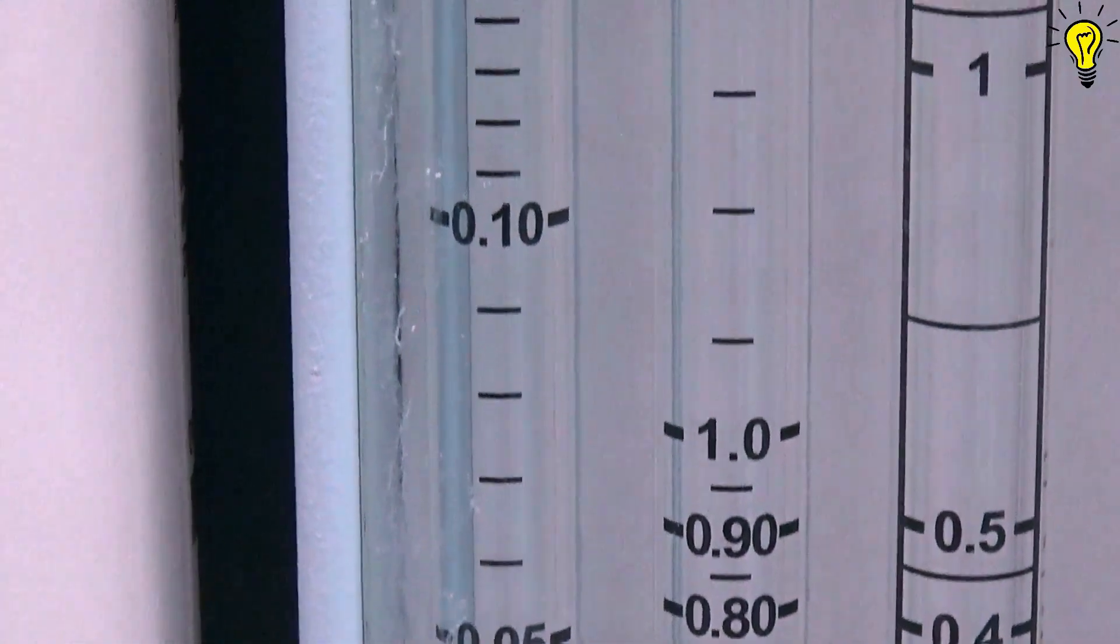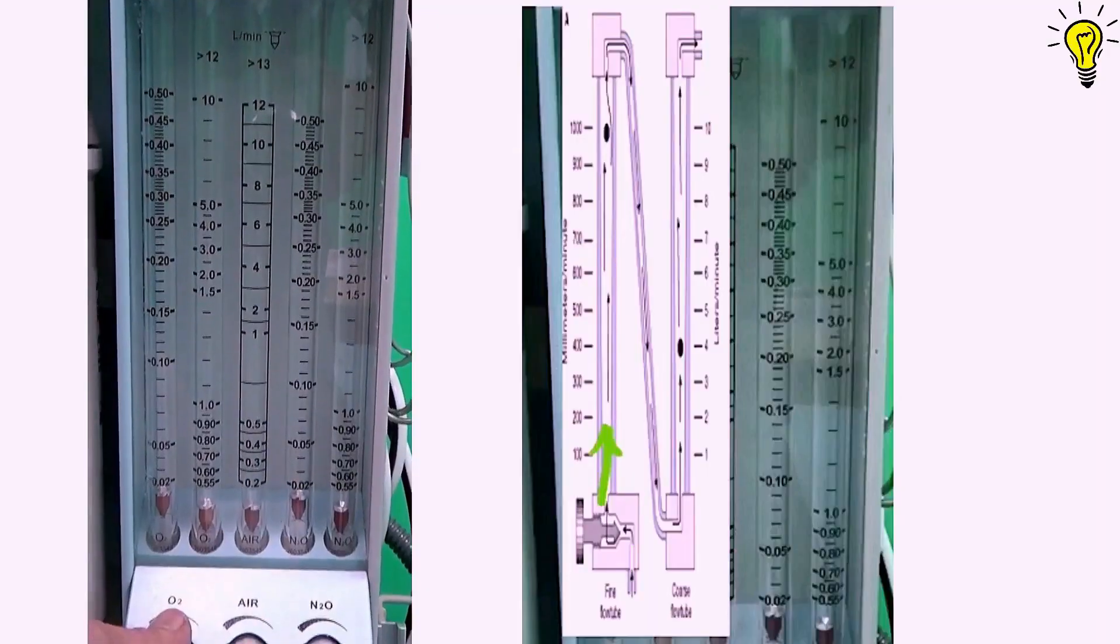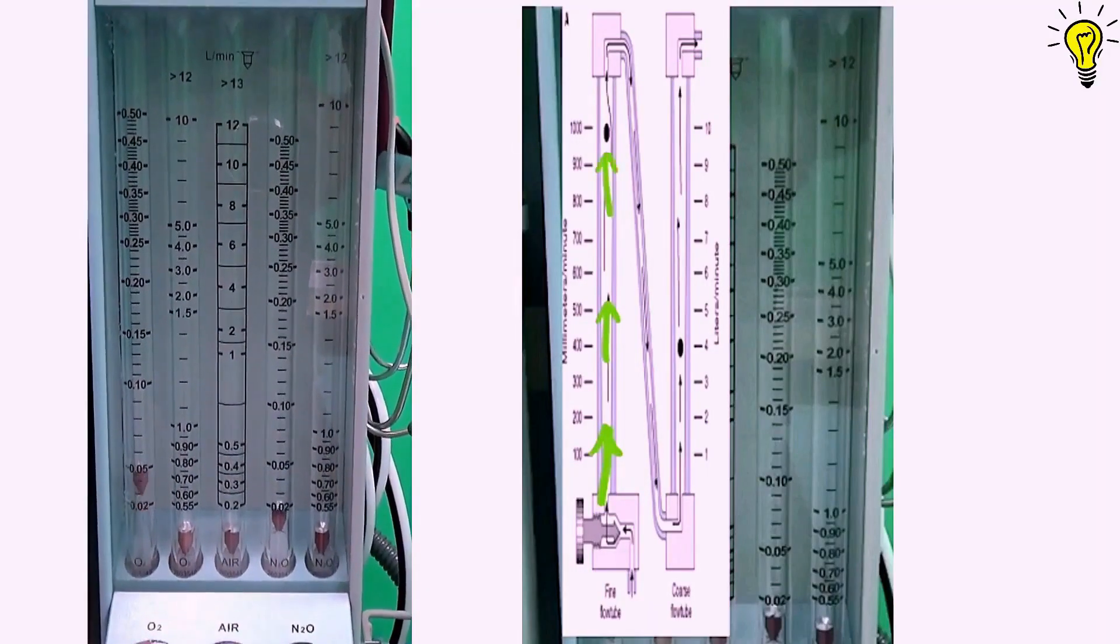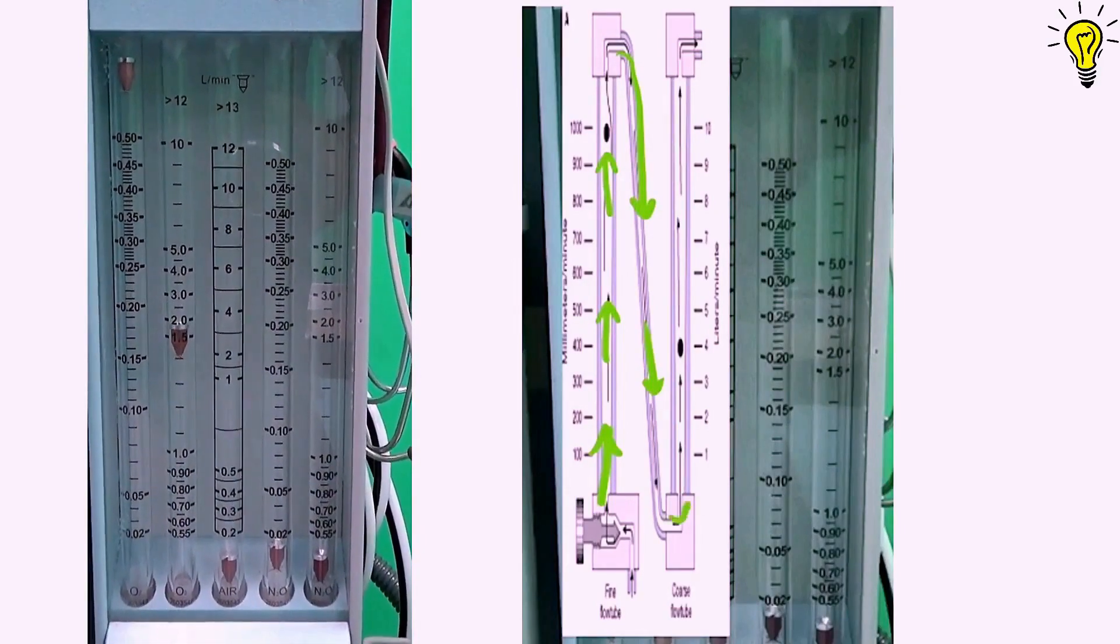Another refinement has come in precision flows that the top tubes aligned in series for specified gases. Now opening the oxygen flow, it first travels through the thinner low flow tube, then in series moves to the bigger one.